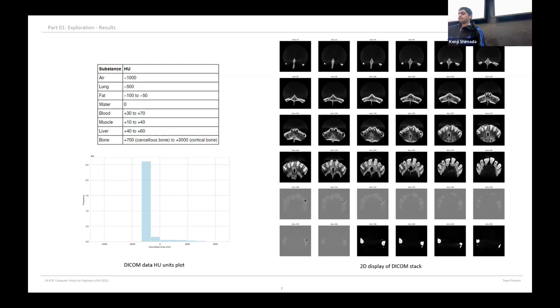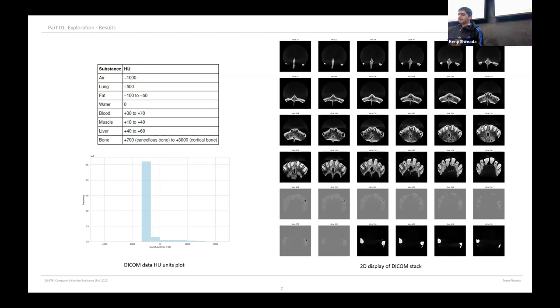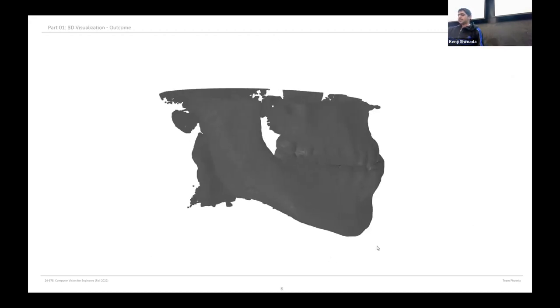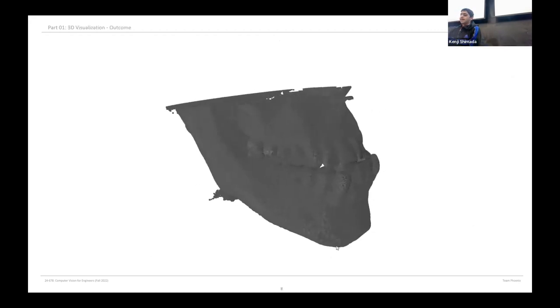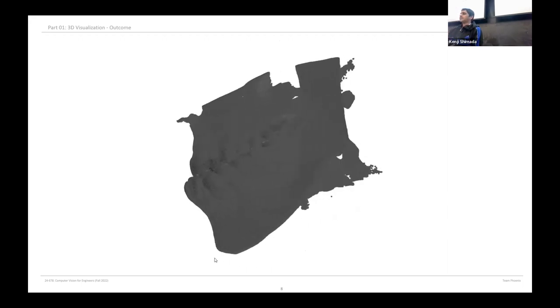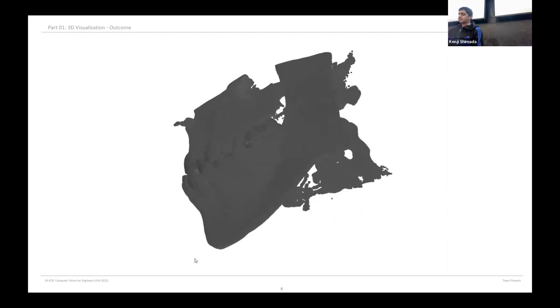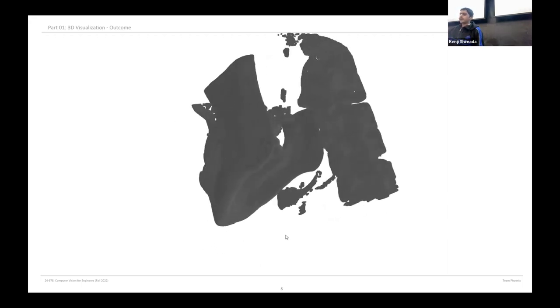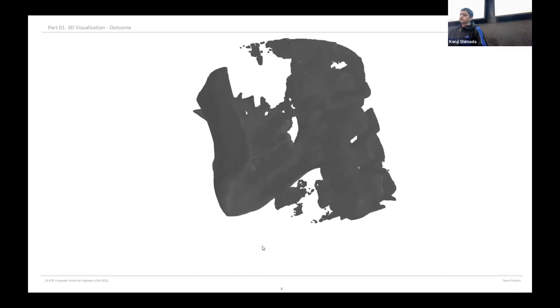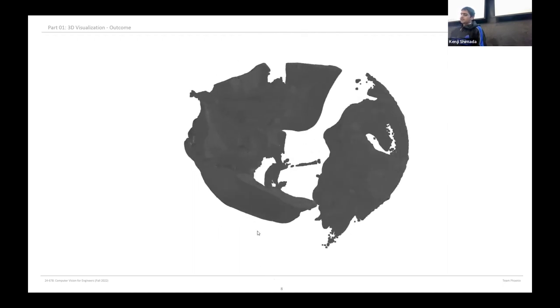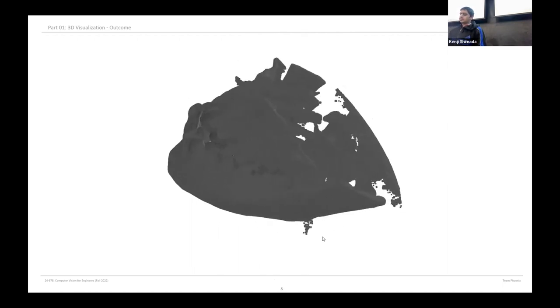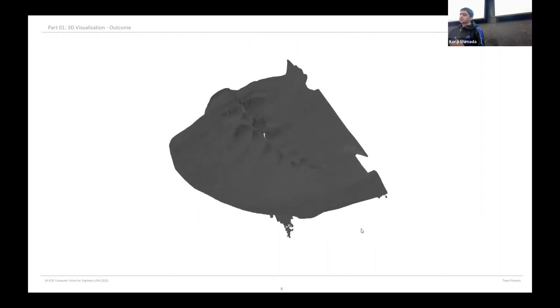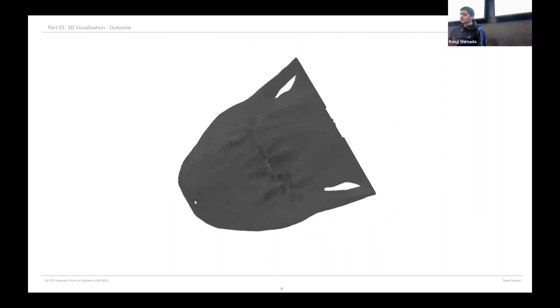We now have the two dimensional stacked images over each other, but the main aim was to visualize the 3D reconstructed dental images so we could analyze it clearly. To achieve this, we created a meshed image and defined the size of each voxel. A voxel is basically a 3D representation of pixel. Then we defined a particular threshold for generating the mesh. After generating the threshold, we used triangulation techniques to generate the 3D representation.